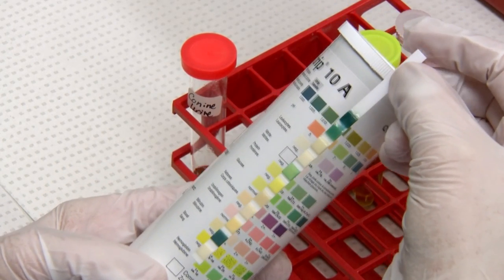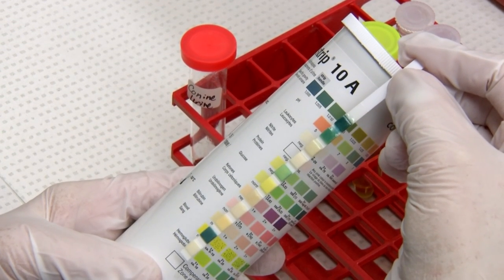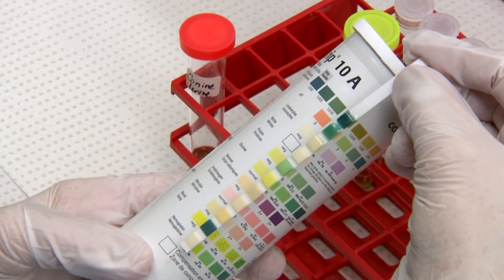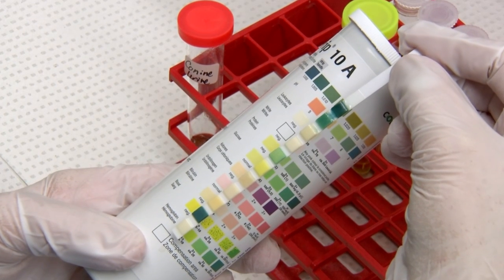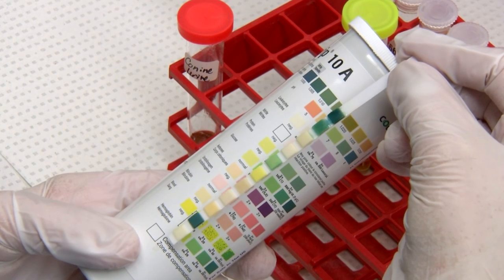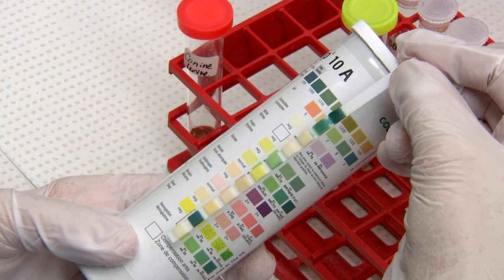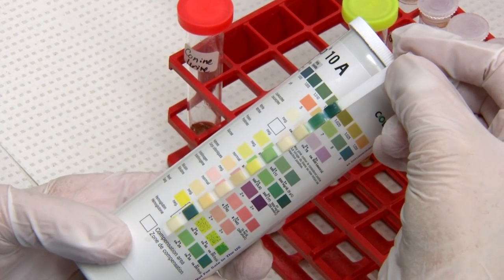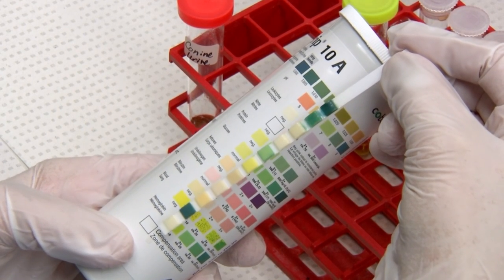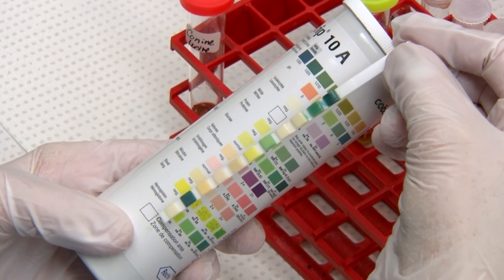To read your strip, start with specific gravity — we don't read that because it isn't accurate in animals on the strip. Then we do pH, reported at intervals of 0.5. Leukocytes is not considered significant in veterinary medicine, so we don't report that — and be aware that in cats they excrete an esterase, so this will always be positive in cats. Nitrites are also not considered important in veterinary medicine, so we don't report that either.